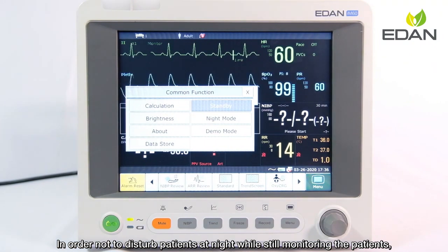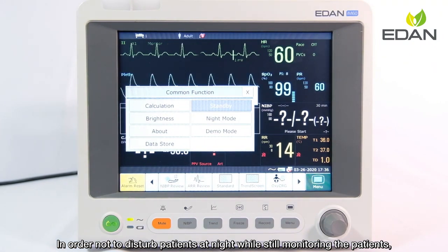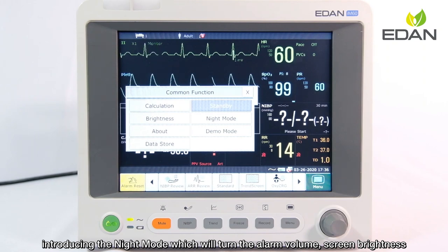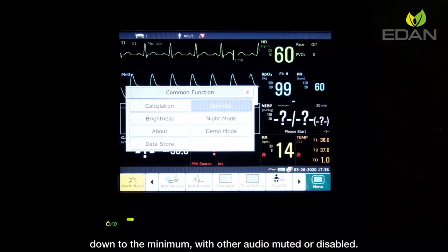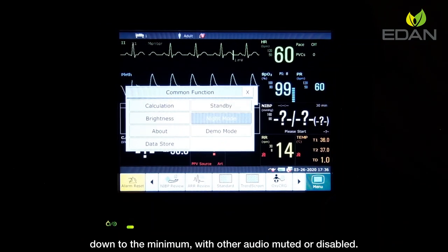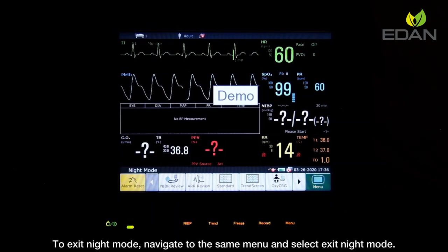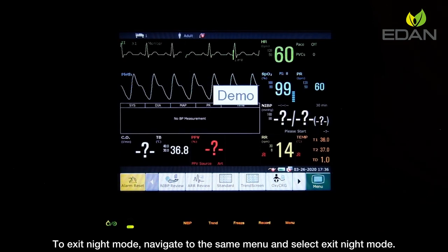In order not to disturb patients at night while still monitoring them, the device offers night mode, which turns the alarm volume and screen brightness down to the minimum, with audio either muted or disabled. To exit night mode, navigate to the same menu and select exit night mode.